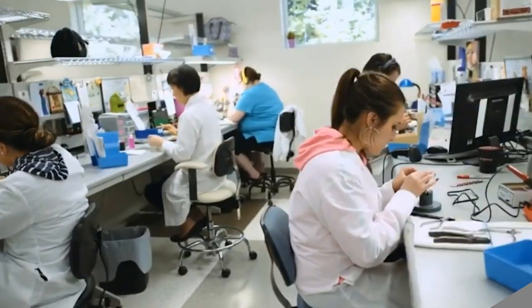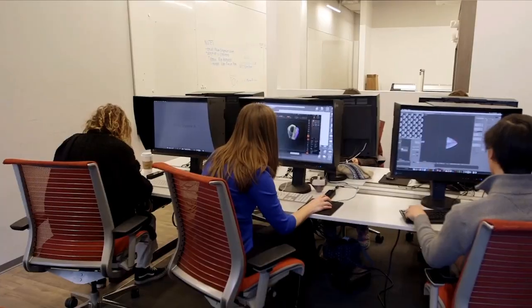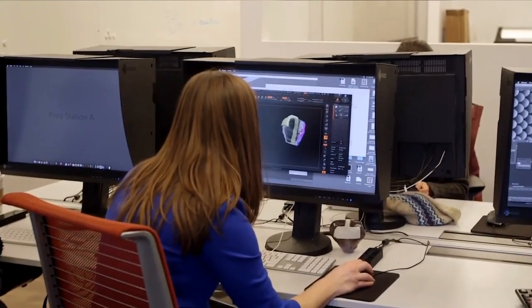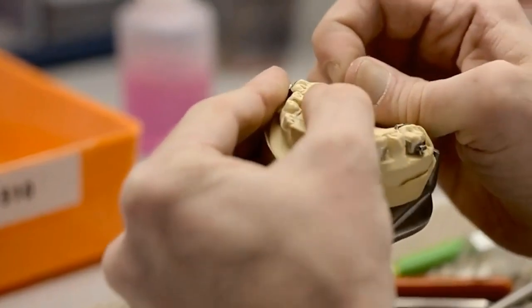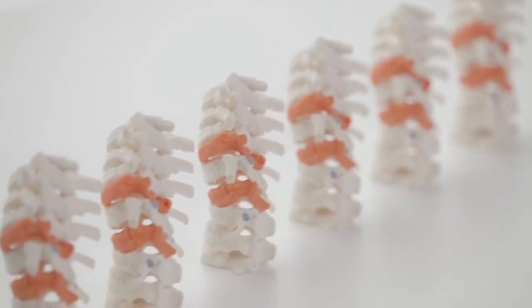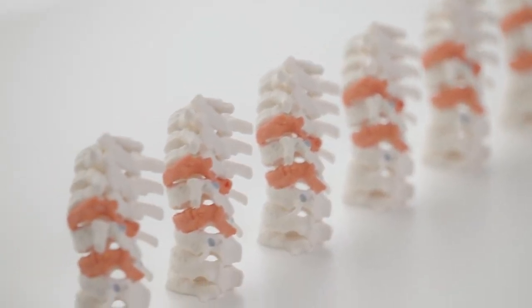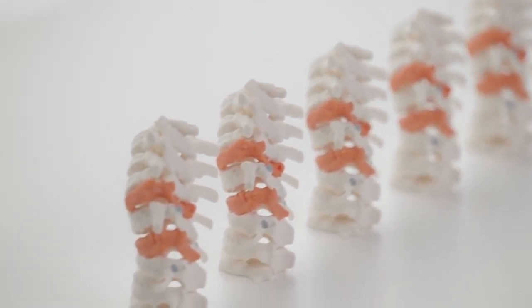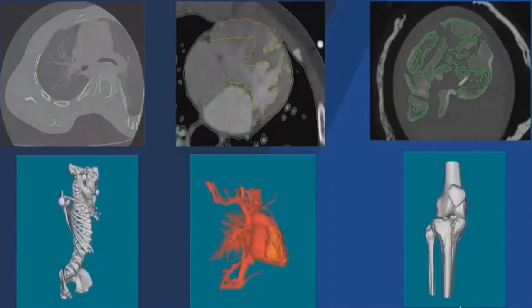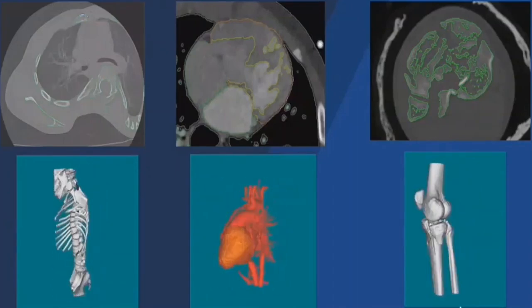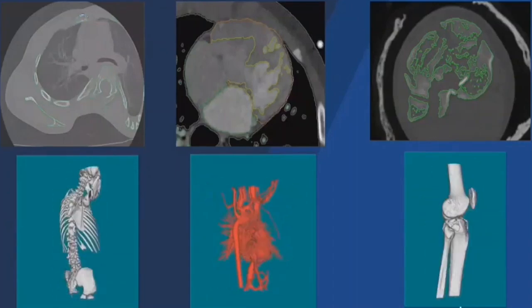Do you work in the medical sector, maybe at a hospital, a research institution, or a medical device manufacturer, and have seen 3D printed anatomical models and gone, how do they do that? On today's 3D printing video tech tip, we'll learn about the best way to go from DICOM image scan to print using a brand new tool called Axial 3D.